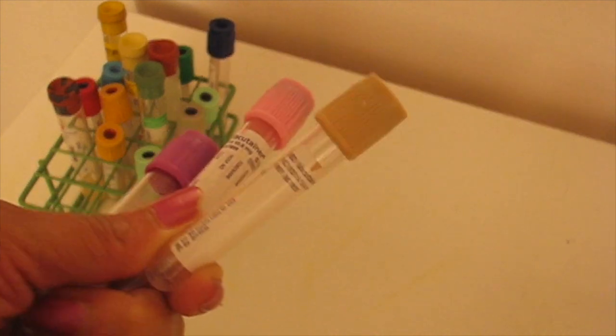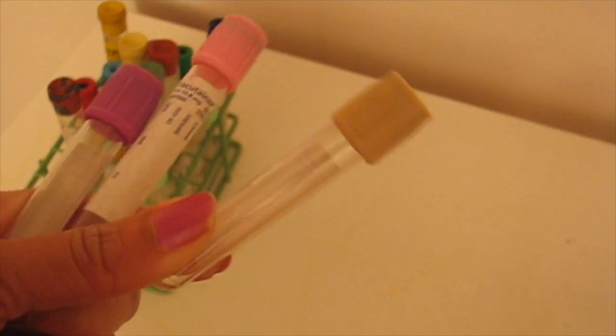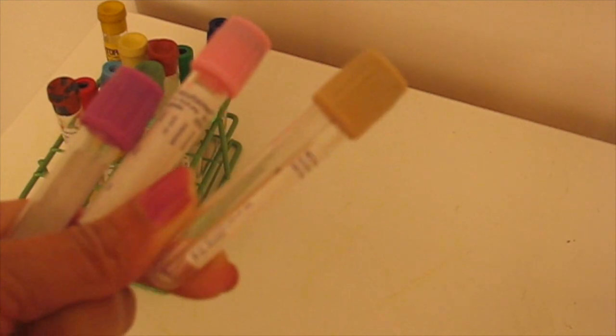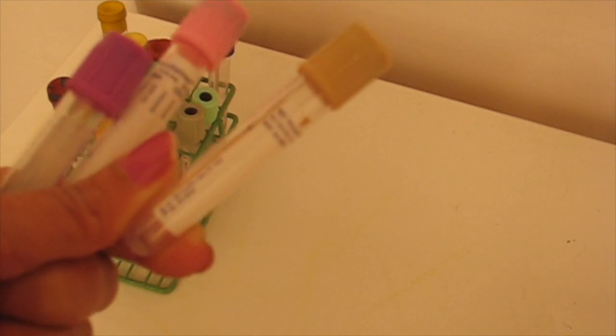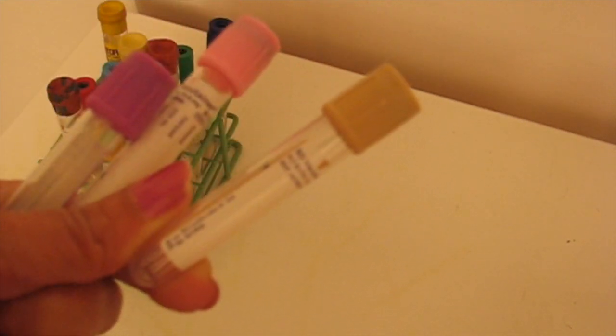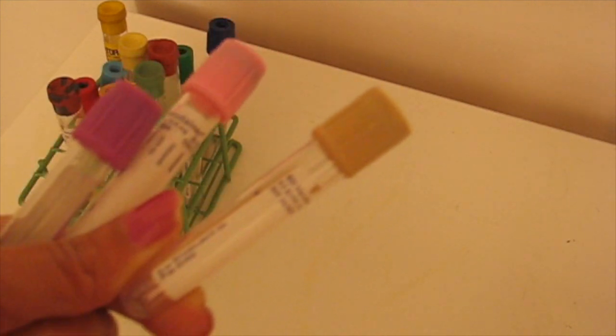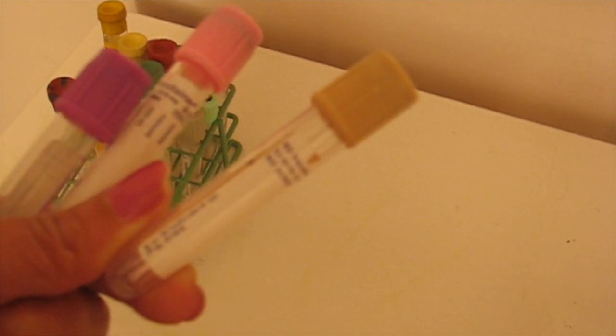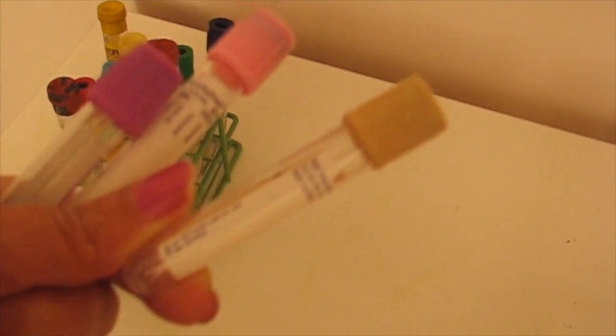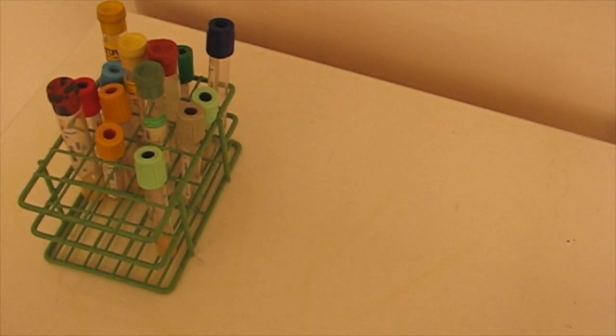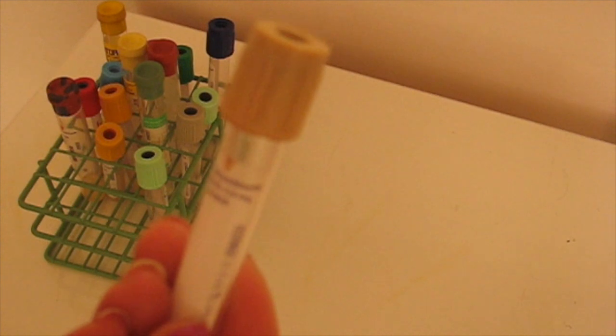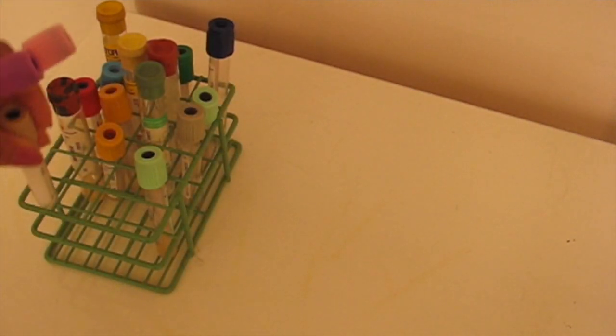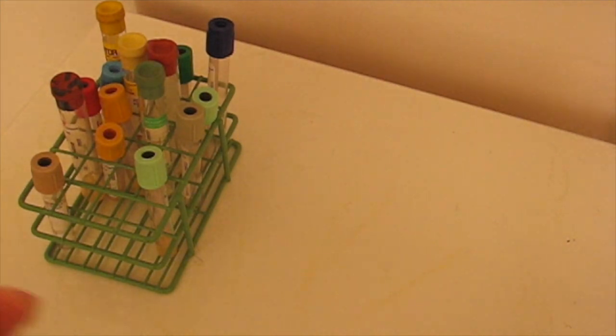You will never use a tan top tube for a CBC or anything that's going to hematology. This tube is going to yield whole blood and it's not going to go to hematology. I do know for us it detects lead exposure for a patient.